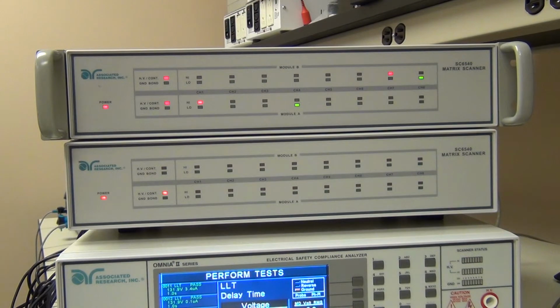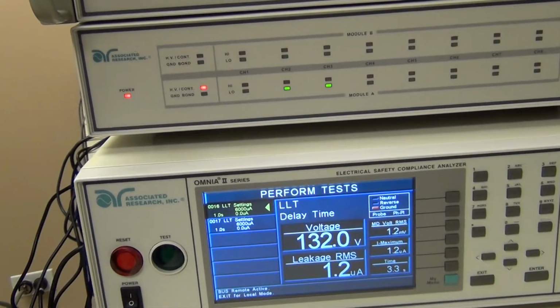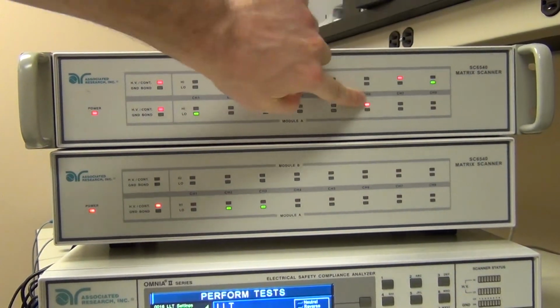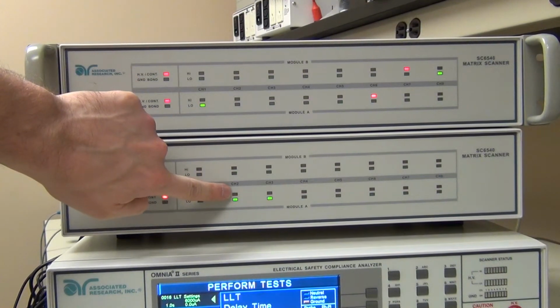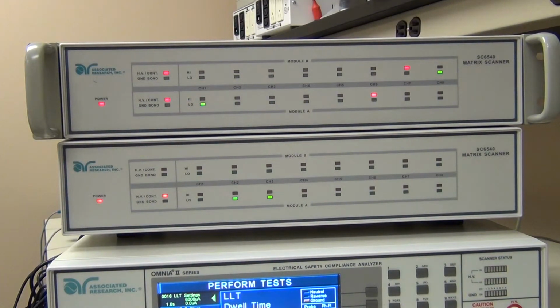Finally, we have our mains on applied part test. And here we can see, getting a little more leakage, only about 1 microamp in this case. But now we have probe high to probe low, line voltage connected to probe high, which is channel 6, and probe low connected to patient lead 1. At the same time, on the other scanner, I've shorted my neutral to my protective earthing point because I've tied those points in there.